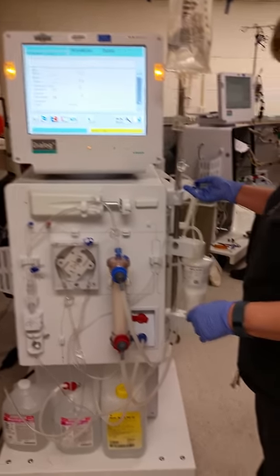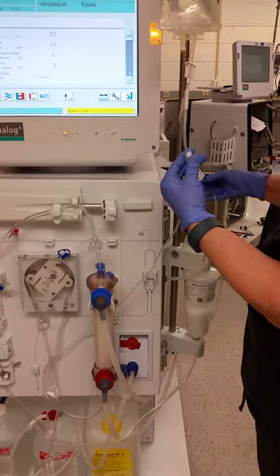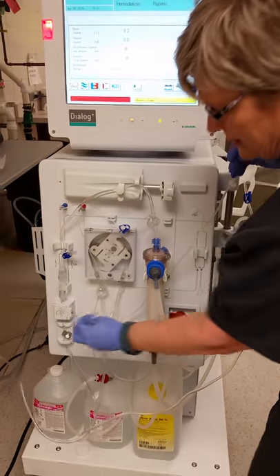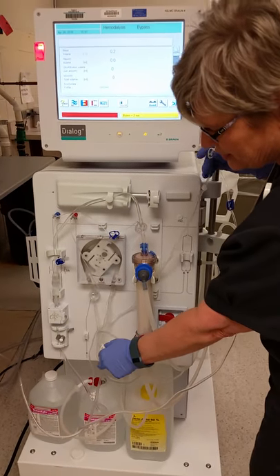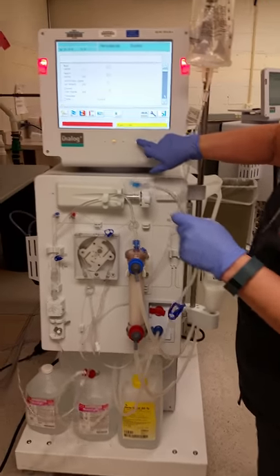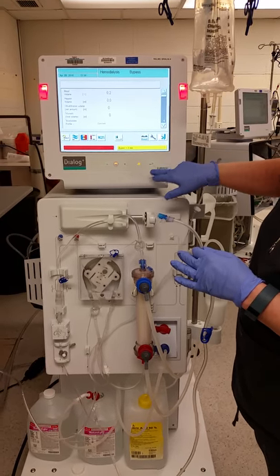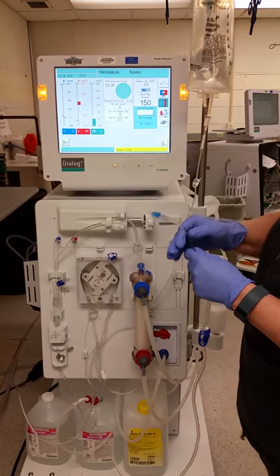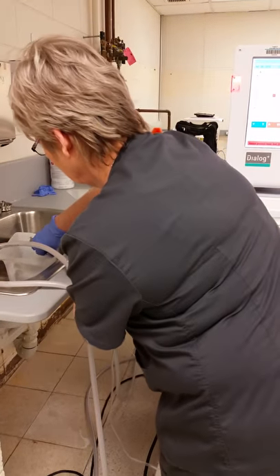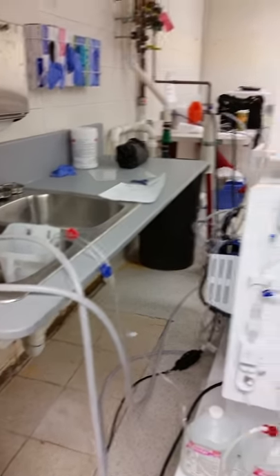When the volume reaches 0.2, stop the pump and do three clamps: clamp the venous line, then use the two clamps on the IV line — one here and one toward the bottom — making sure both are clamped so you don't get airing when you connect to your patient. If you have an alarm, press it once to mute it, and press it twice to clear it. Then go out to the main screen.